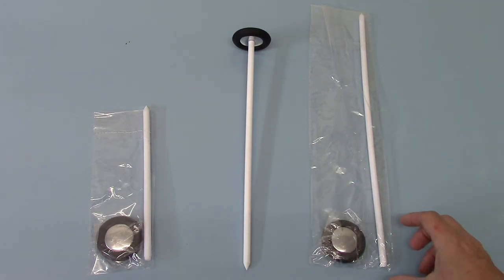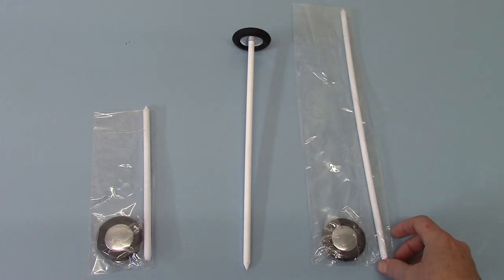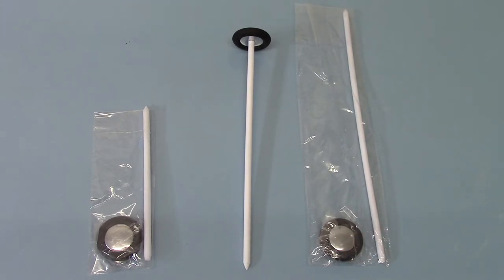And if you really want to get your reflexes and having problems with it and need to get a good hammer action with a long flexible hammerhead, then the 38 centimeter handle gives you that option. It basically gives you much brisker reflexes, but obviously it gives you a much brisker hit on the actual tendon as well.